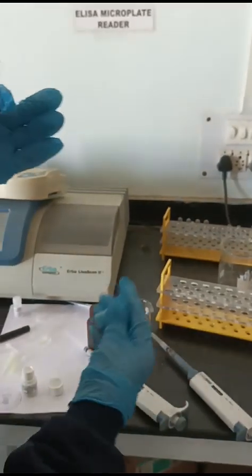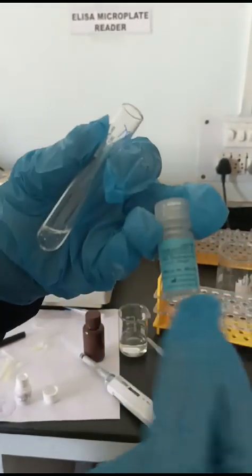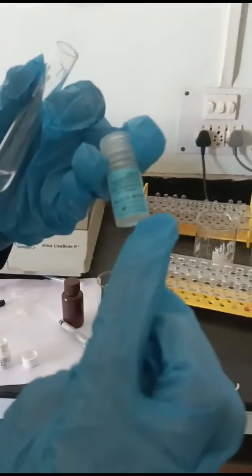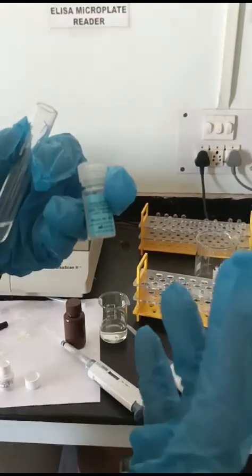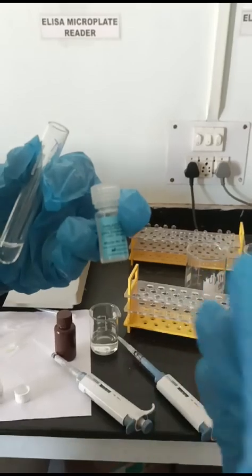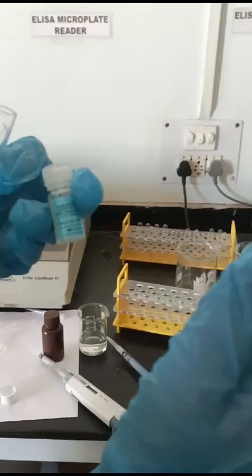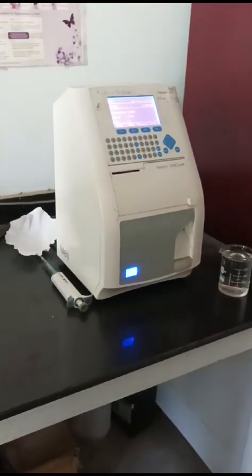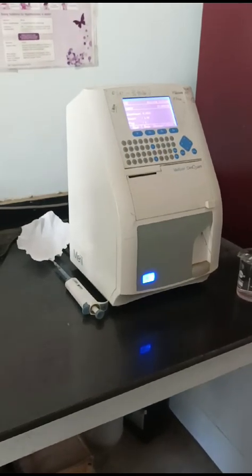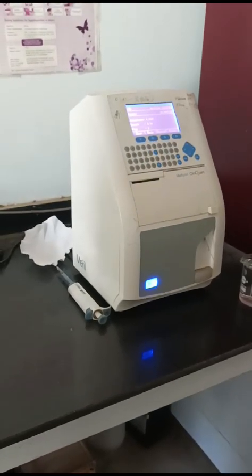As well as we will be using standard HDL cholesterol, also 100 microliters, and put in the corresponding test tube. In the blank we will be using 100 microliters of distilled water and perform the test. Use the instrument to read the value just like in the case of total cholesterol, and we will get the result. This is the end of the test. Thank you.